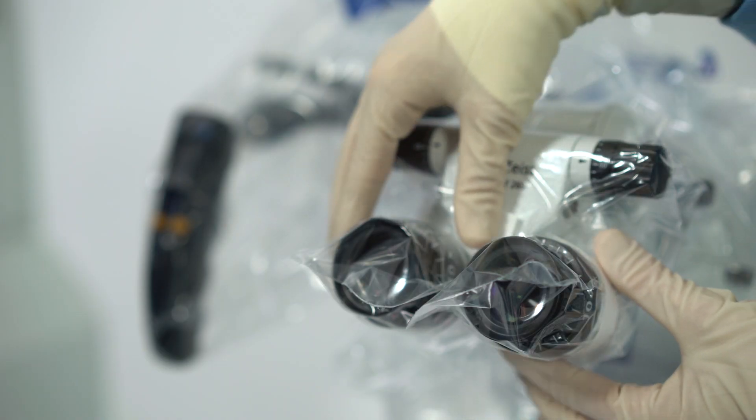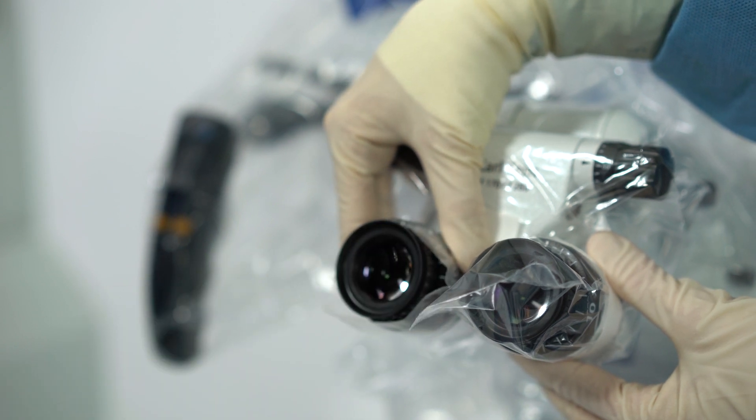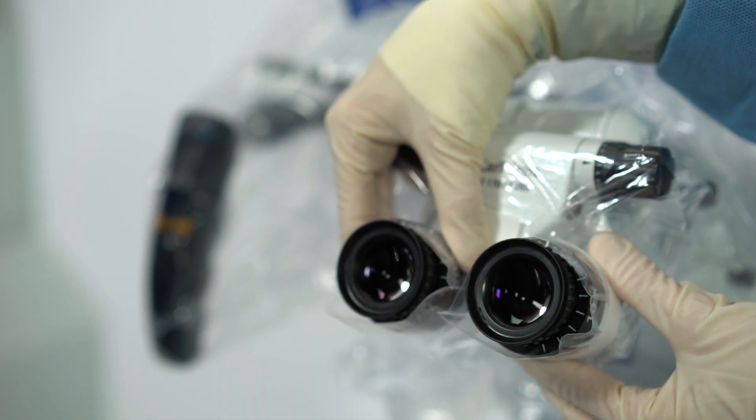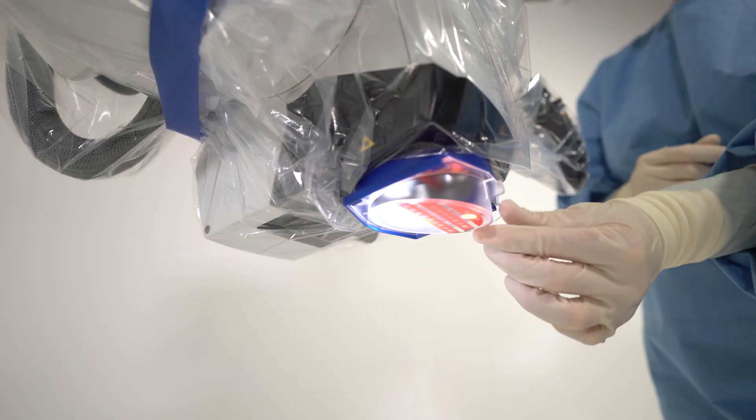When working with oculars, remove the ocular covers along the perforation line. Also remove the lens protection film.